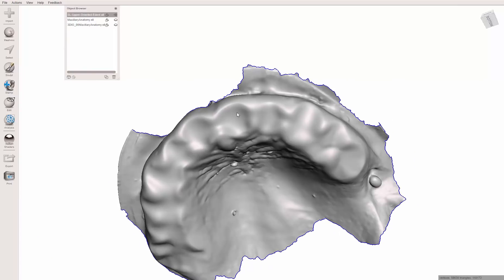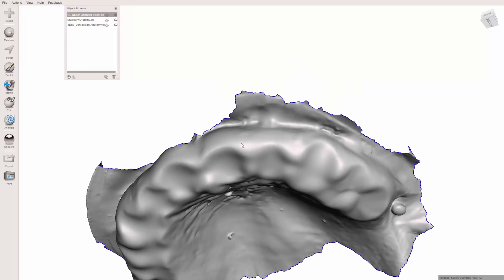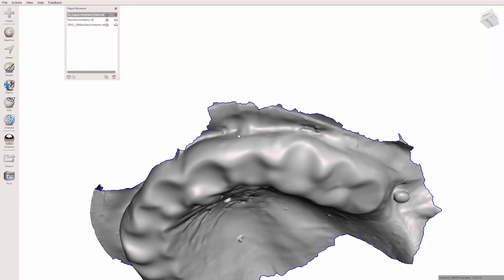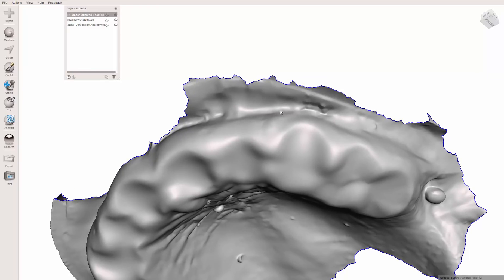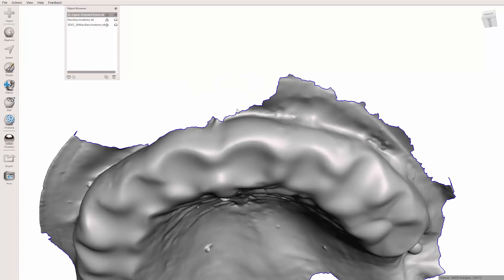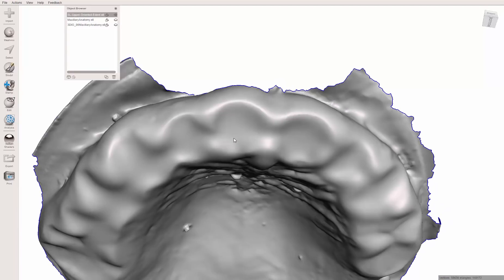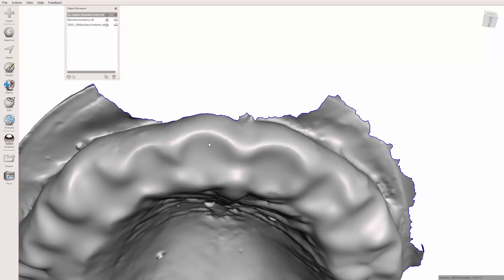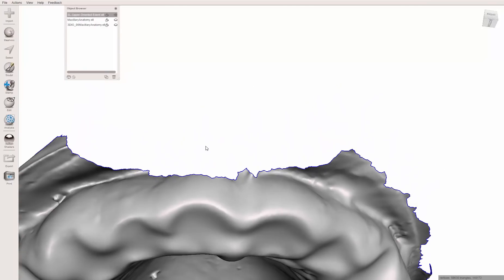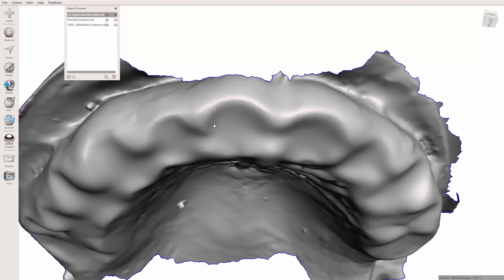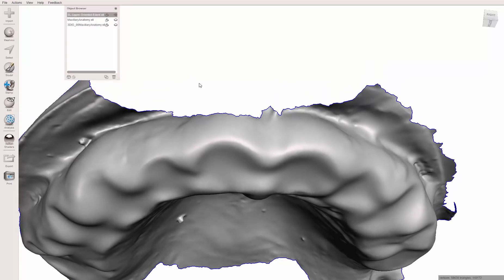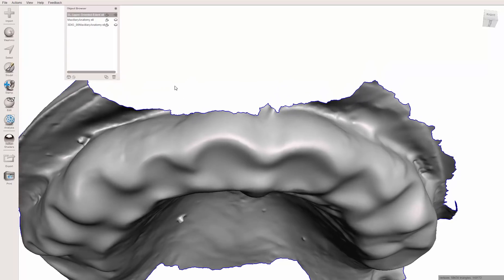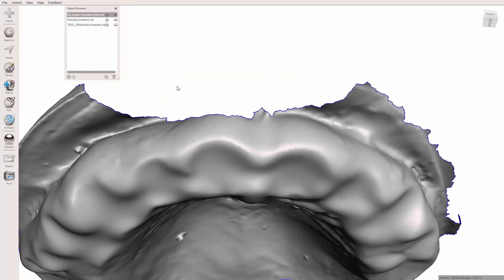I've already removed a stone nodule. This was an alginate impression that was digitized. I've already removed a glob here and another one right here, pretty smooth just by selecting, hitting the F button for Erase and Fill and adjusting the bottom two sliders. I talk about that in another video. Instead, what I'm going to show you is the bridge tool and I've got three different models. You can watch one of these and be done with it or if you want, you can watch all three different situations.